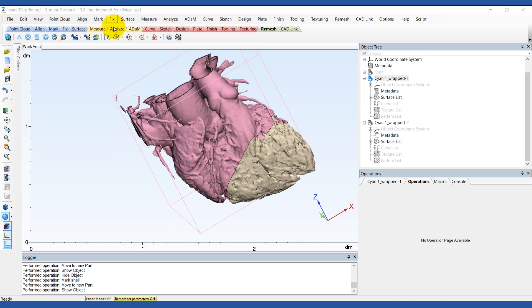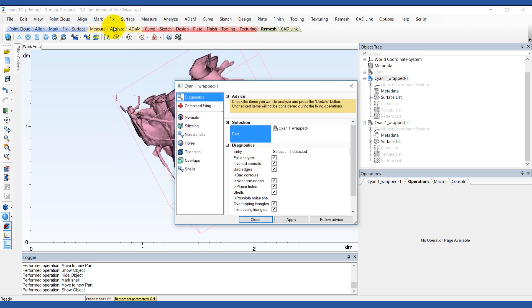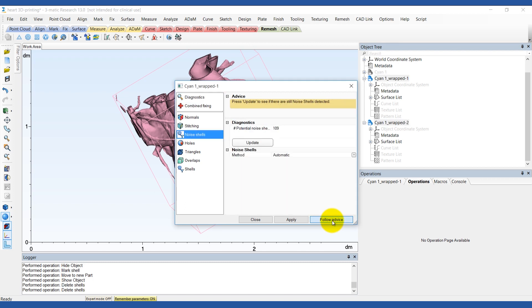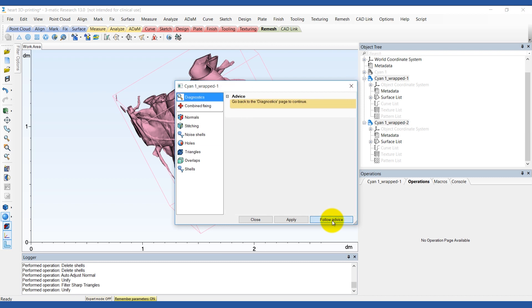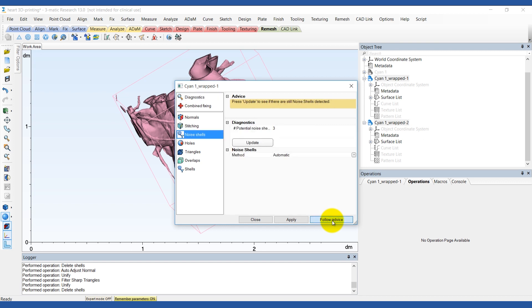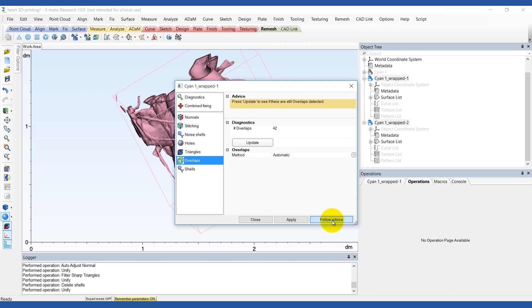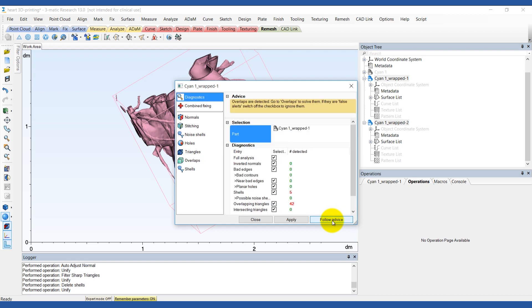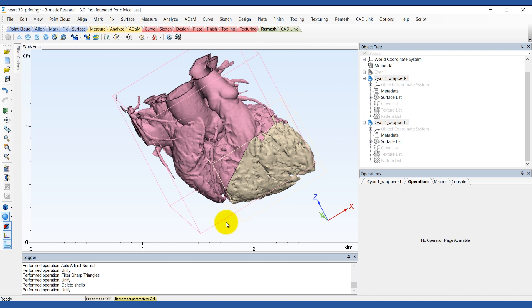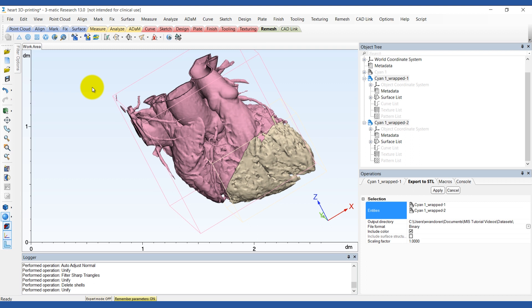When you're done cutting your model, send it to the Fix Wizard under the Fix tab. Make sure Full Analysis is checked and then hit Follow Advice. This is going to analyze your part for any issues it might have, such as inverted normals or intersecting triangles. Any issues can automatically be fixed by continuing to click Follow Advice. At the end, you might have multiple shells if you're supposed to, and possibly some overlapping triangles — don't worry about those, your part will still be printable. Once your part is fixed, export it as an .stl file, which is ready to send to the printer.